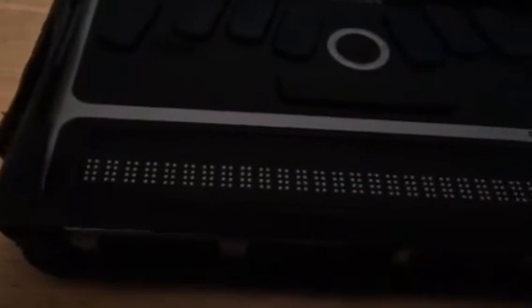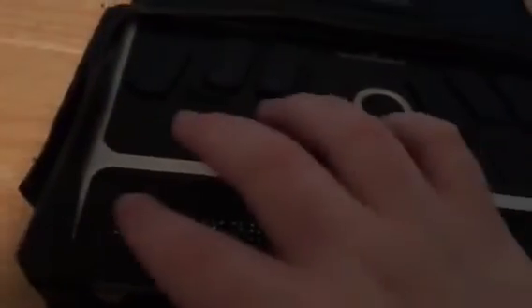Now, my display has gone blank. Still blank. Okay, phew. There it goes. So now starting keysoft is on my display. Got a little nervous there for a second, but that's all right. Okay, so starting keysoft has appeared.